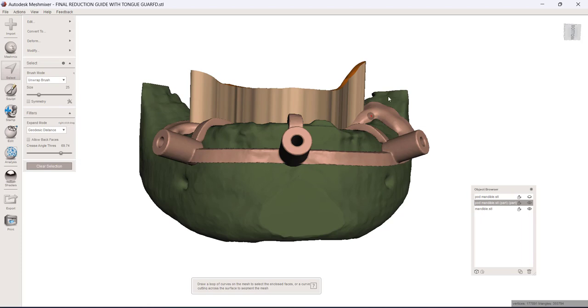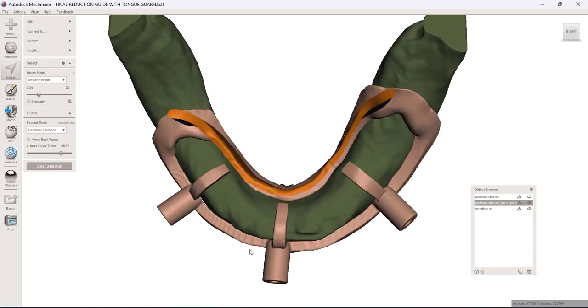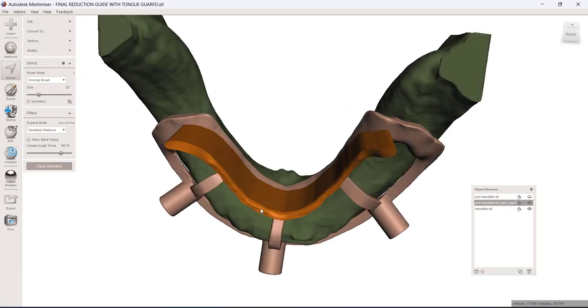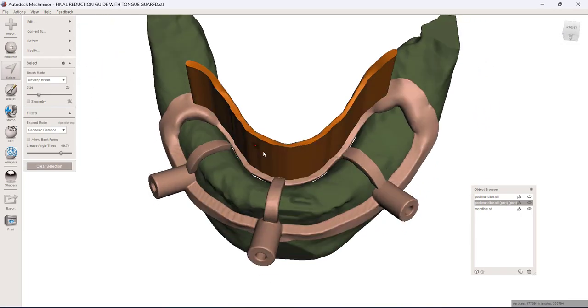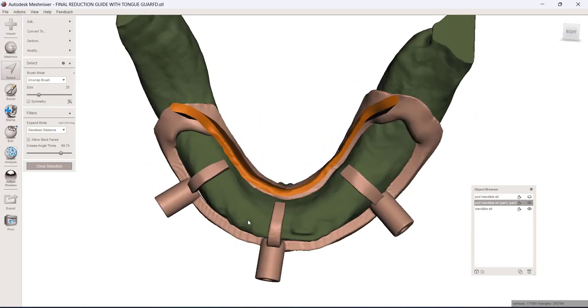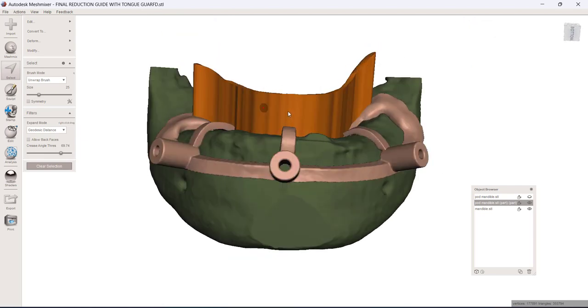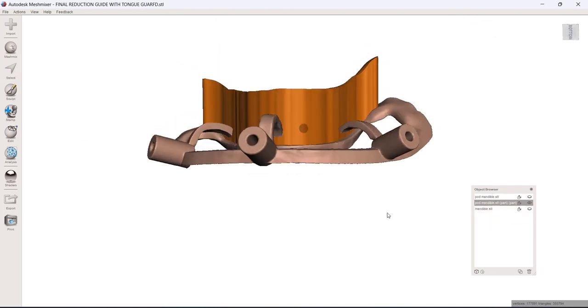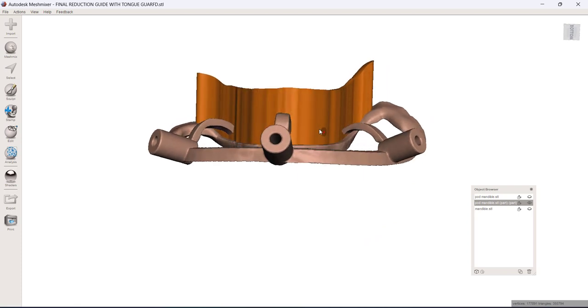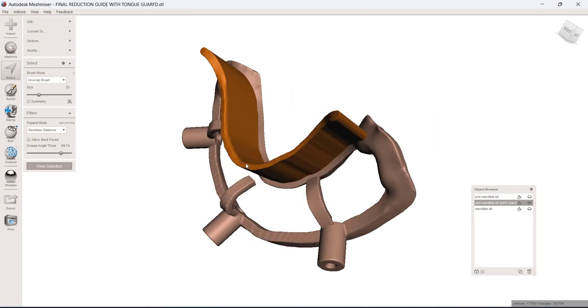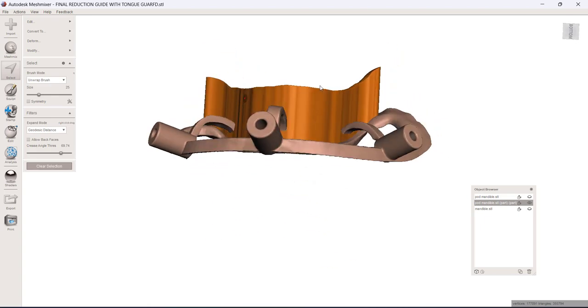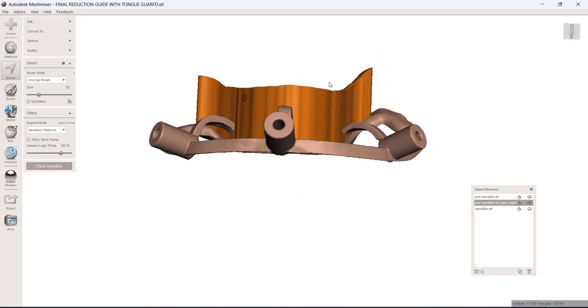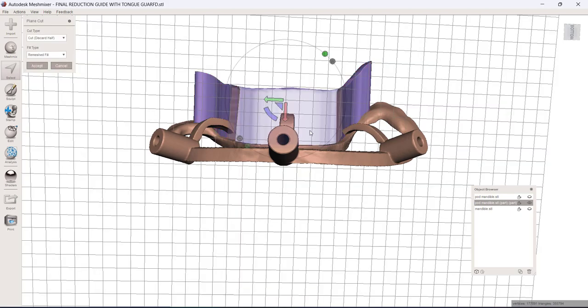And then you could go ahead and just print this and grind it to whatever contour you want. Or if you'd rather just go ahead from the start and get something a little bit more finished looking that doesn't require any post-processing, we could just now select that area and we can just do a plain cut on the area that we've got selected. So let's just do that. I'll double click here. I've got all of that area that I've extruded up selected.